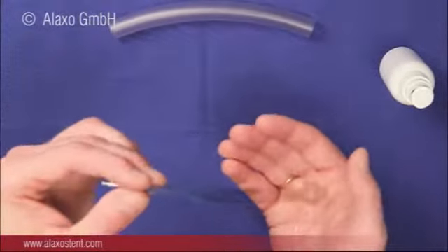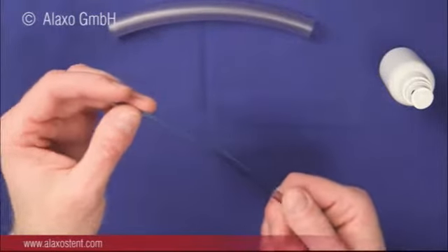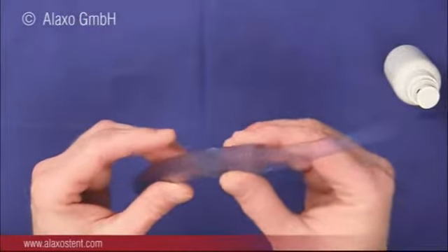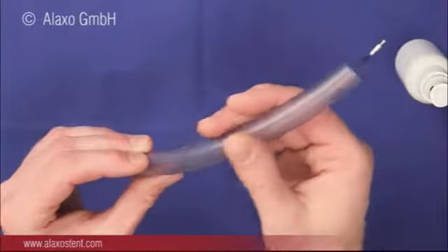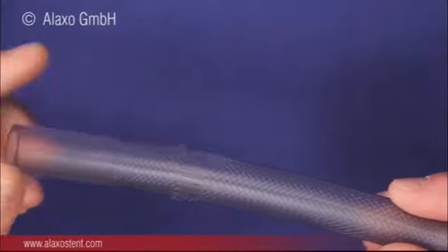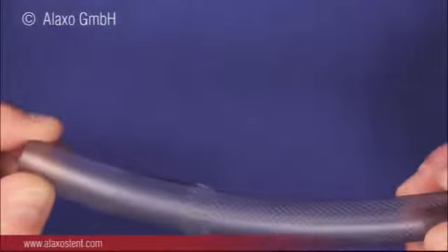After removal of the stent, it is cleaned under flowing lukewarm water for removal of adhering mucus. Then the stent is cautiously pushed over the cleaning tube. This allows mechanical cleaning in longitudinal direction under flowing water. Further, the stent can easily be checked for intactness of the rounded wire ends.